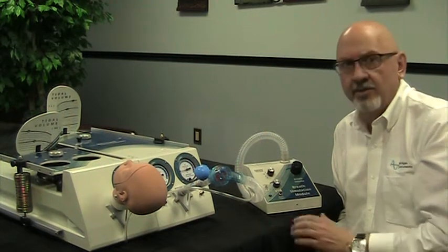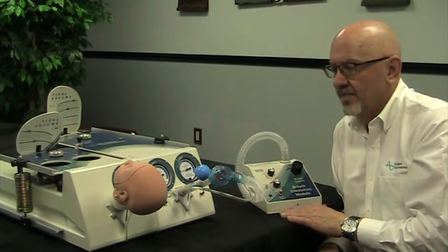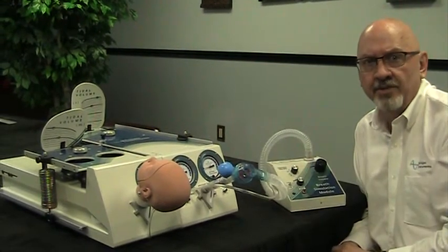We're often asked if you can use the BSM breath simulation module to create spontaneous breathing simulations with an adult infant TTL or NuView system.